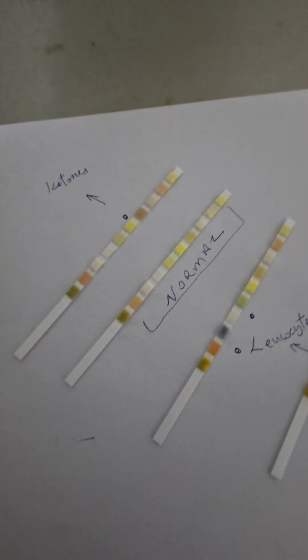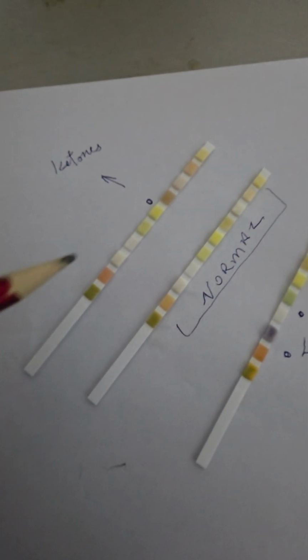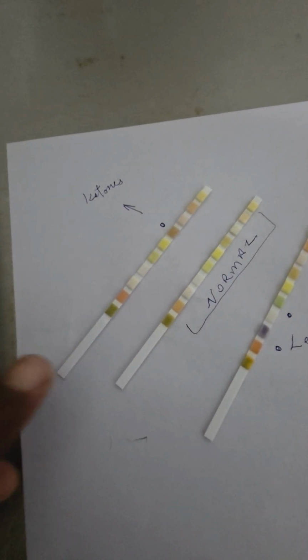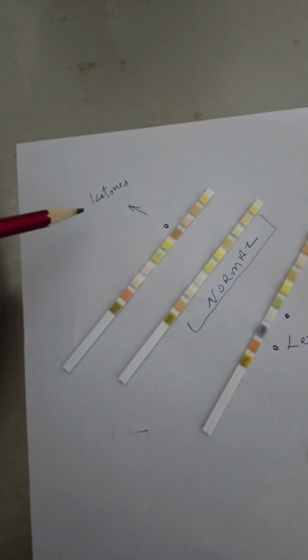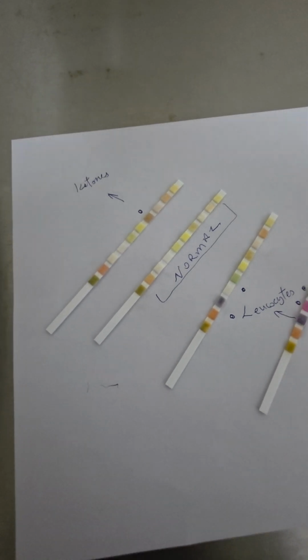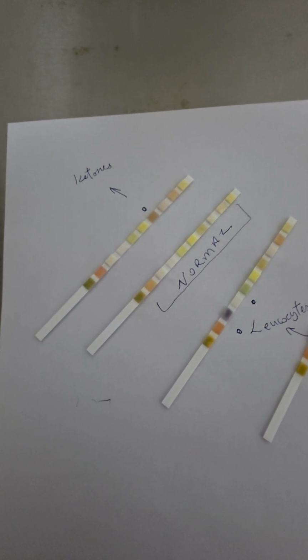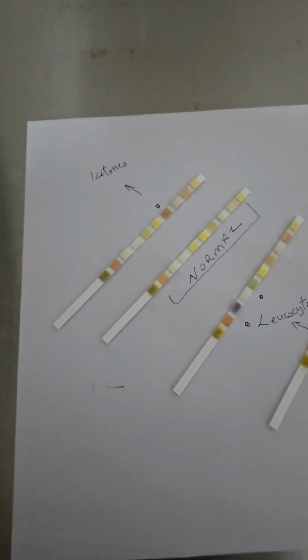I have some important things to share with you. Please bear with me, but I think it could help you, it could help benefit someone you know. This is a normal strip here, except for, well, just a little bit of ketones. These are ketone bodies that are found in some patients' urines. It can be caused by different things, but one of the most important is when the body is not getting glucose as a source of energy.